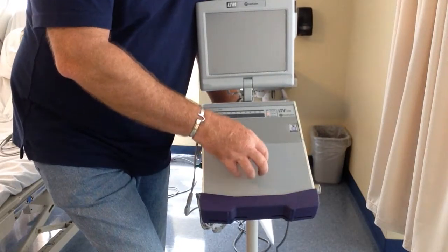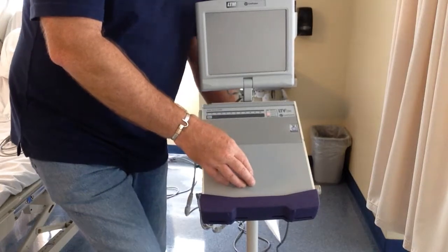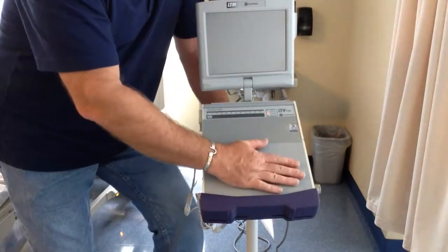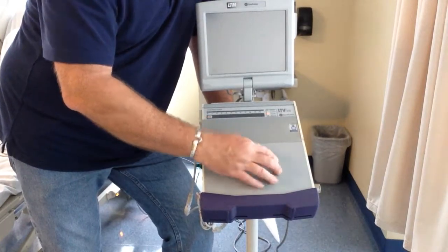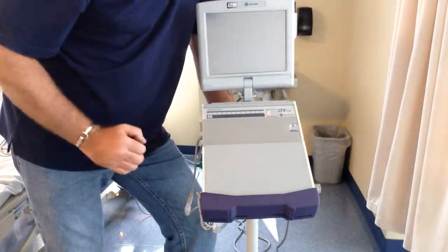This is a ceramic heat dissipating plate. Just understand that this normally gets hot — there is a turbine that is an air compressor, and the turbine gets hot when it works. This plate will heat up, and that is how it cools off that turbine.